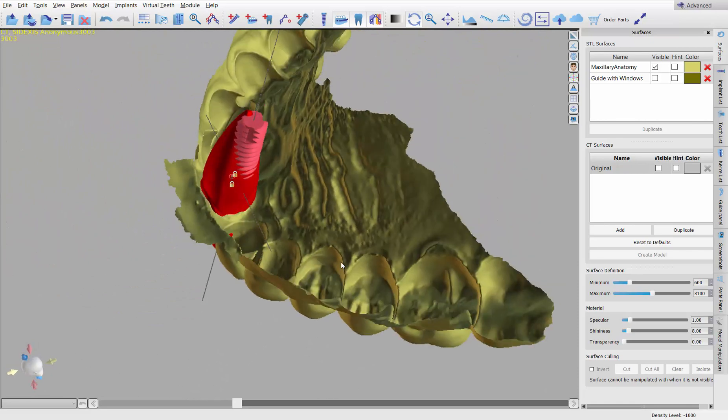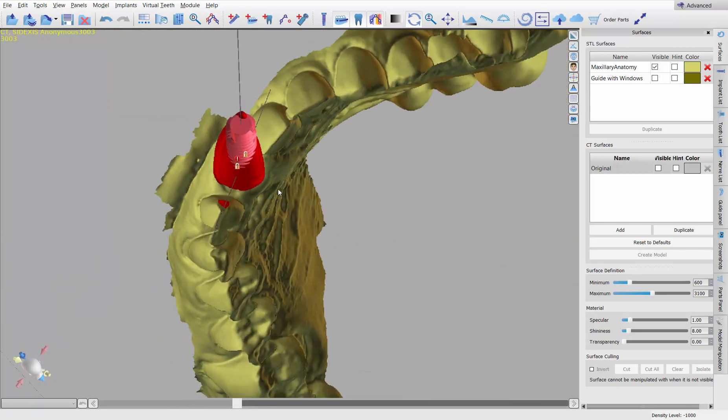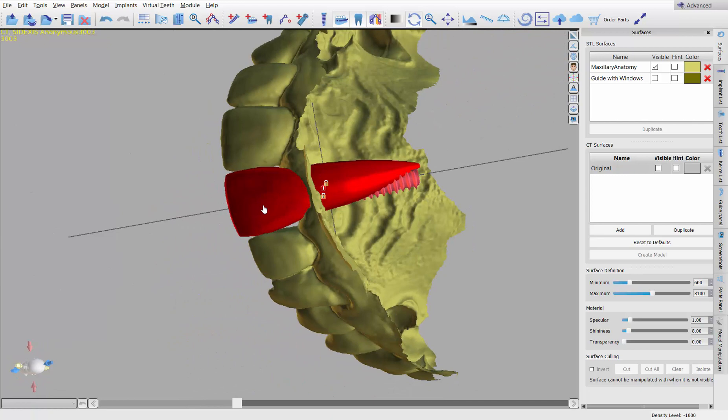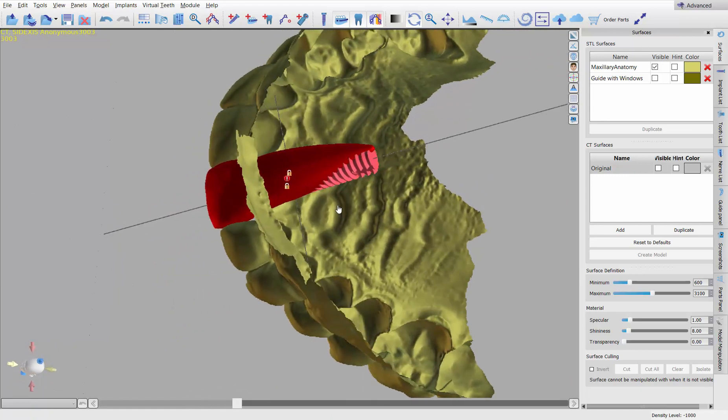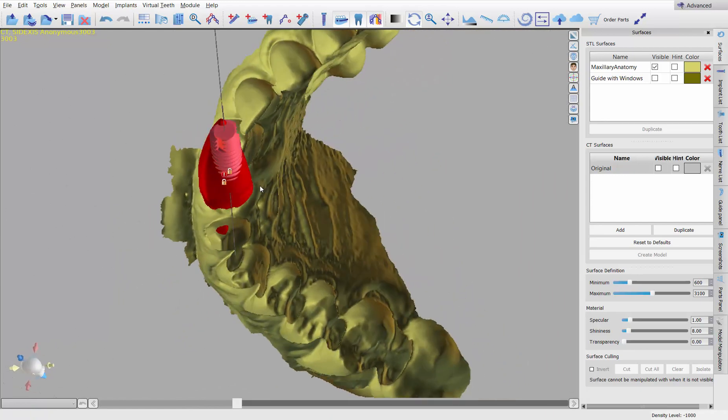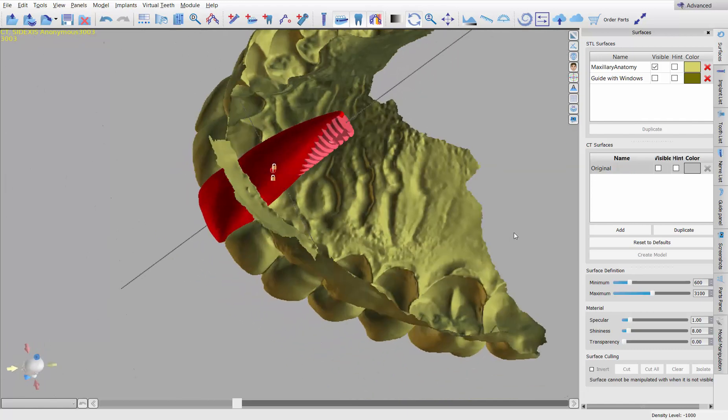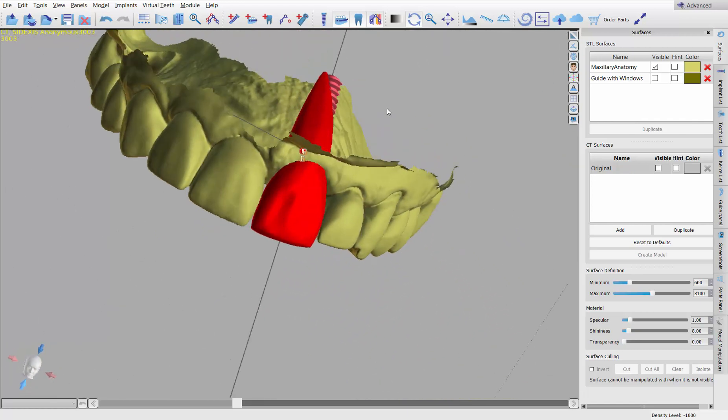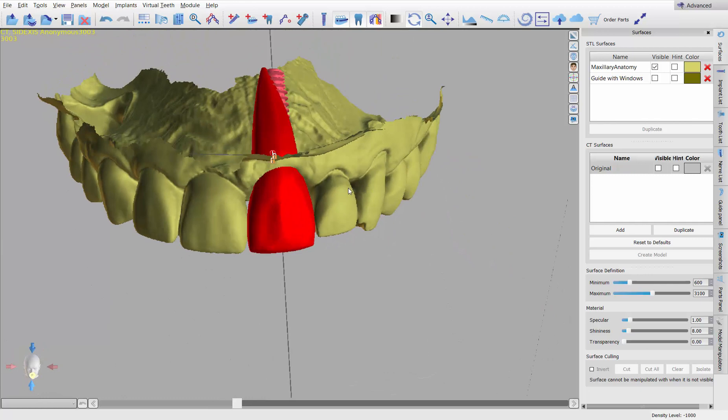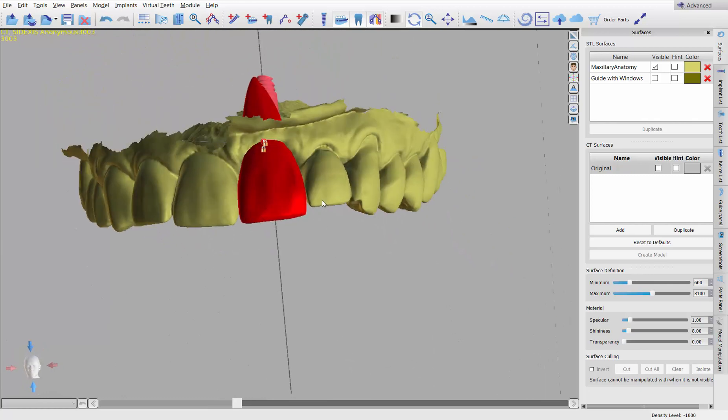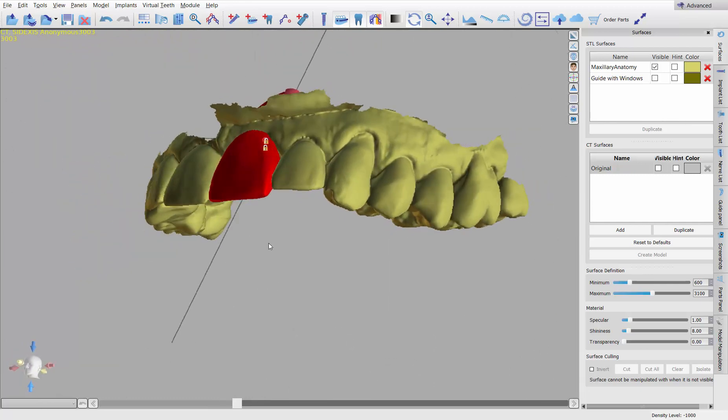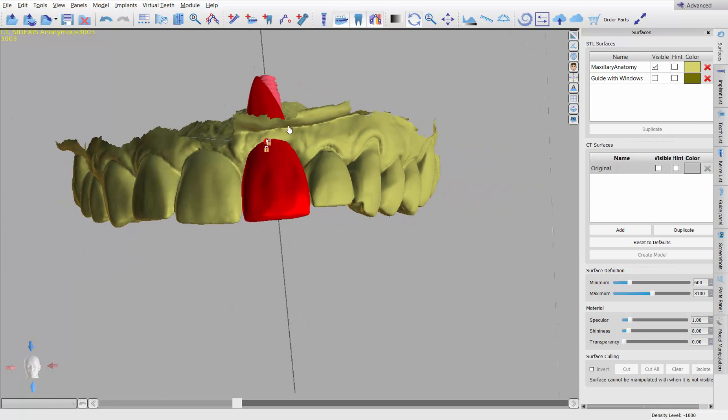And other than that, you know, it's good to go. The implant is not perfectly centered within the root. That's okay. It's just not always going to be that way. I could rotate the root more, but then the crown will be different. Sometimes it'll be perfect. Sometimes we're close to perfect. Sometimes it won't. It's probably good that it's not in this video because it'll help me to give you how to do things a little differently.